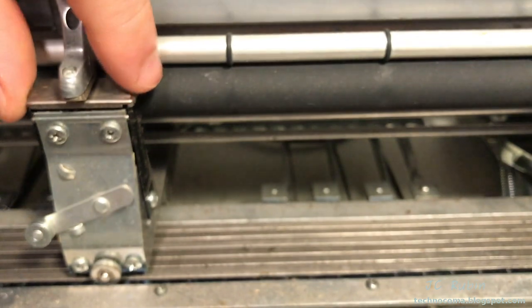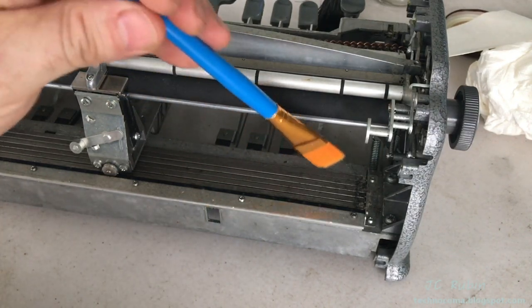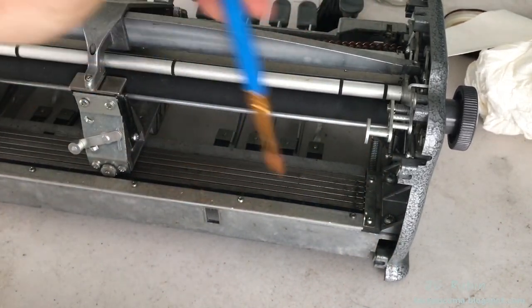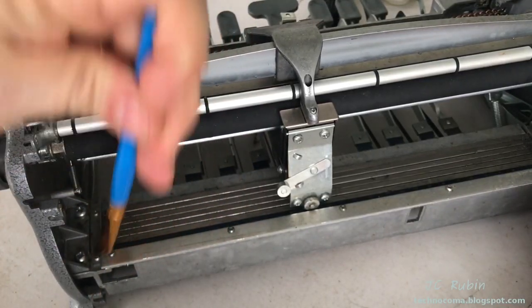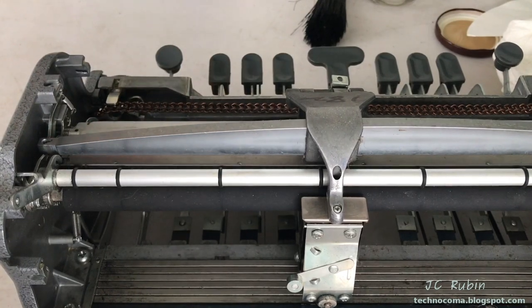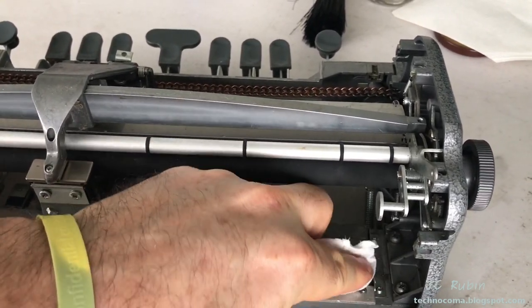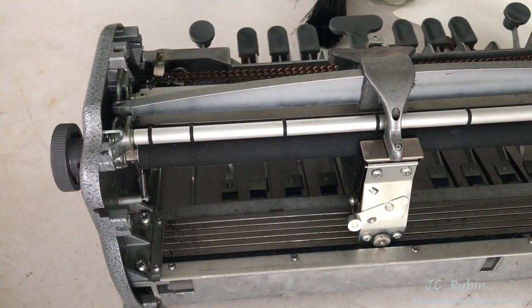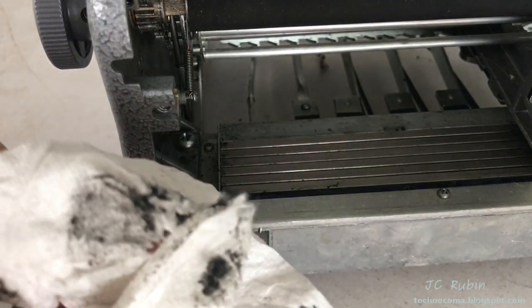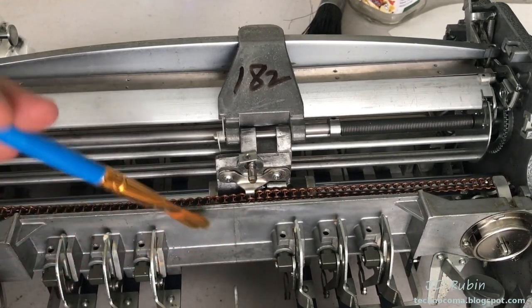My first order of business for the cleaning project is removing accumulated dust with a brush — just getting all this loose dust out, especially on the cams and anywhere loose dust has collected. Where dust and grease have kicked up on the ends, I'm removing that with a paper towel, doing the same on both sides. I also note there's a foot missing that will need to be replaced.